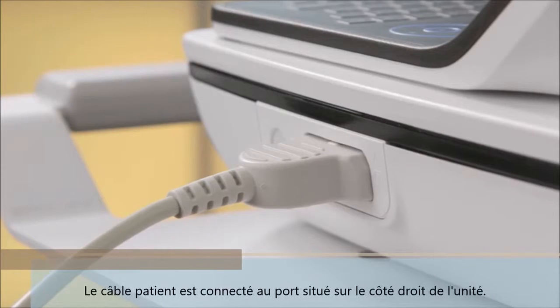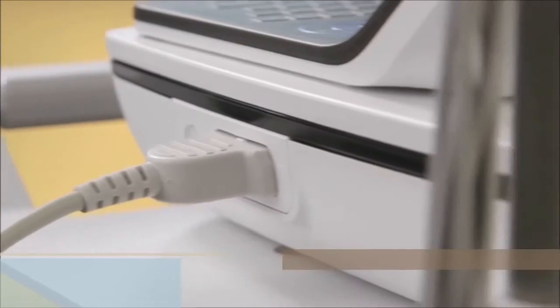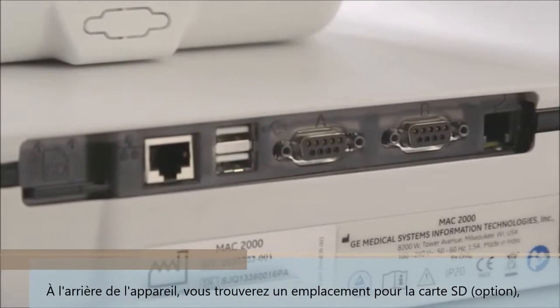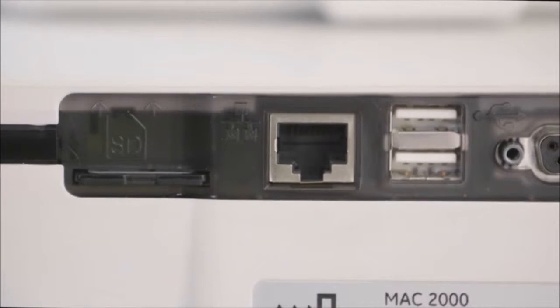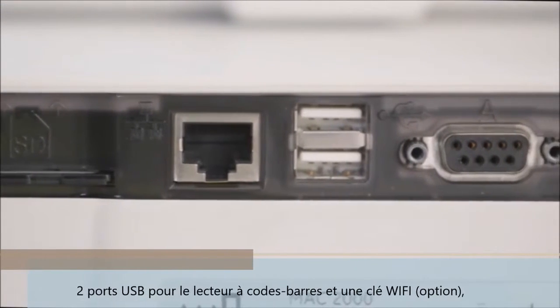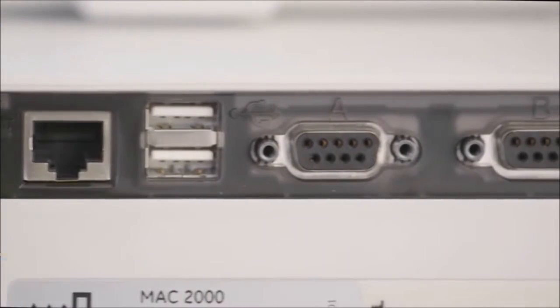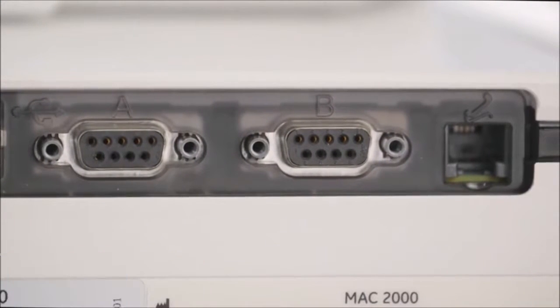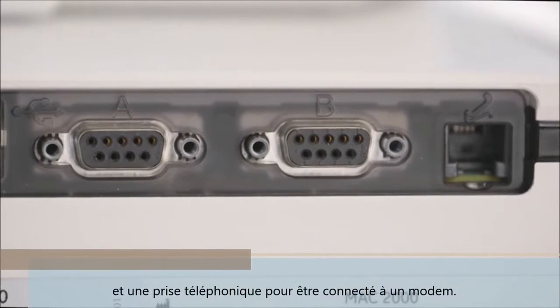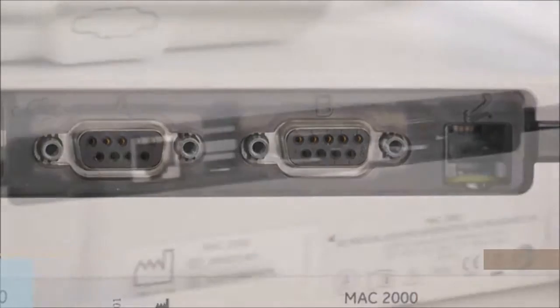The patient cable is connected to the port on the right side of the unit. At the back of the unit, you will find an SD card slot, an Ethernet LAN connection, two USB ports that can be used for optional barcode reader and Wi-Fi, two COM ports for data connectivity to CS or Muse systems, and a phone jack that is for an analog phone line that connects to the internal modem.